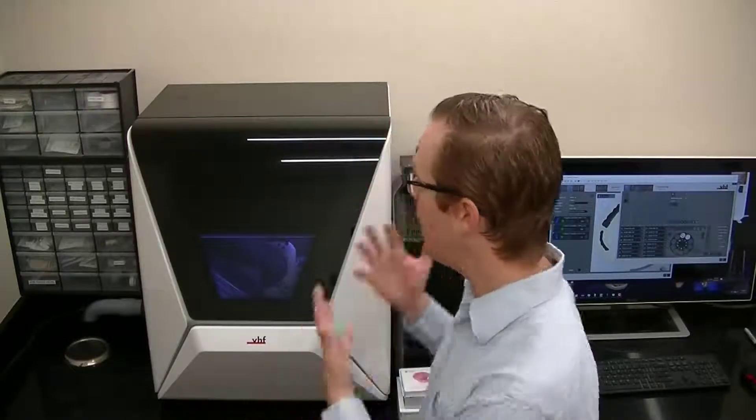As a result, I took my K5 and decided to bring in a VHF R5. The VHF R5 is an incredible machine. It's a high-throughput and really super-industrial type machine that can also work in a combined clinical laboratory environment in my dental office like I have here in California.